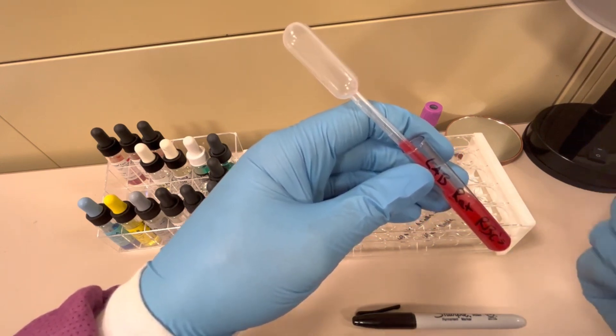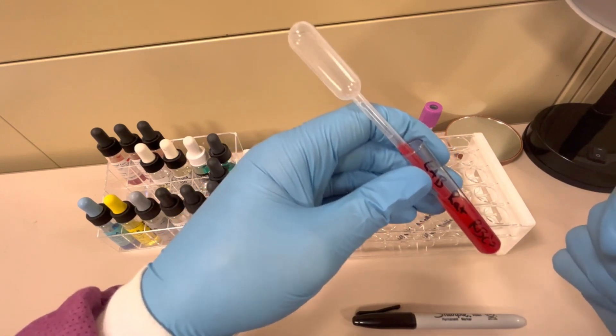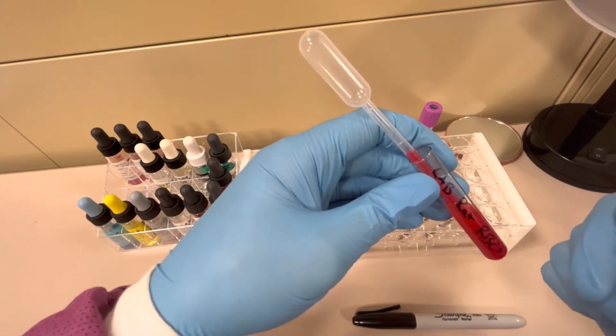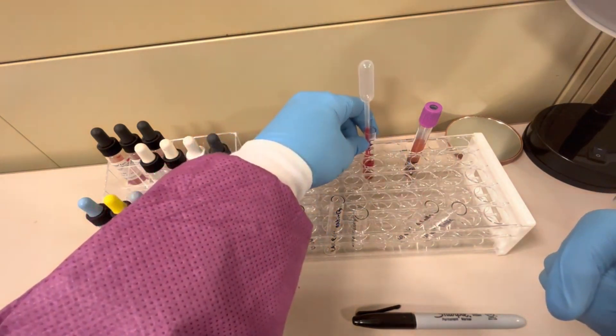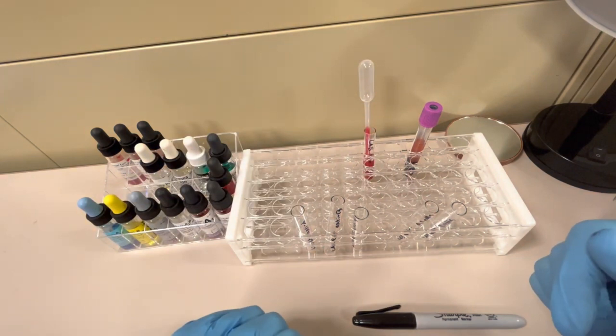These suspensions are used for basically every blood bank test that you do, so it is important for you to know how to do this. Please check out that video. I'll link it in the below.